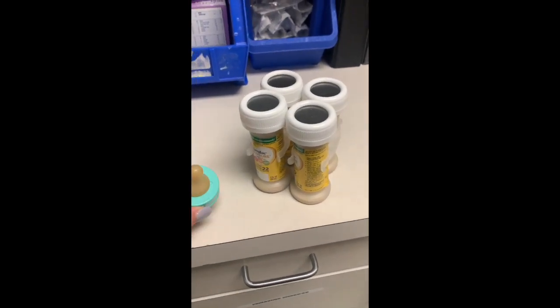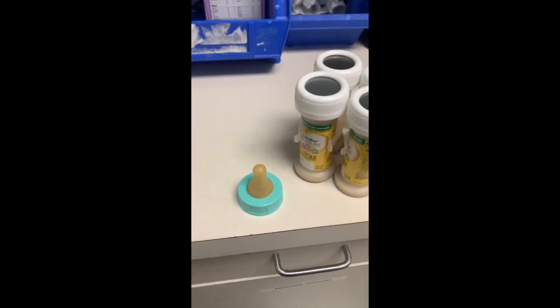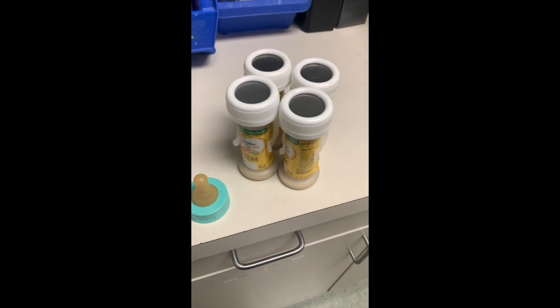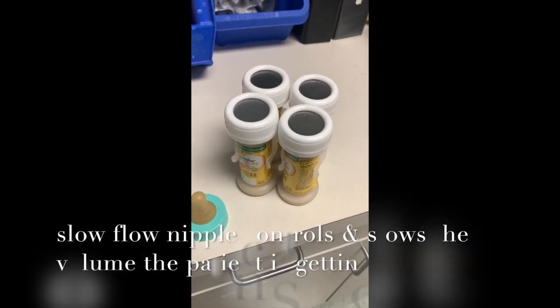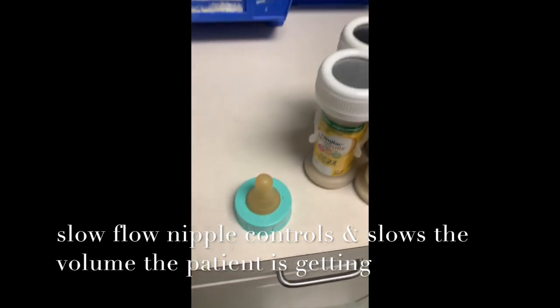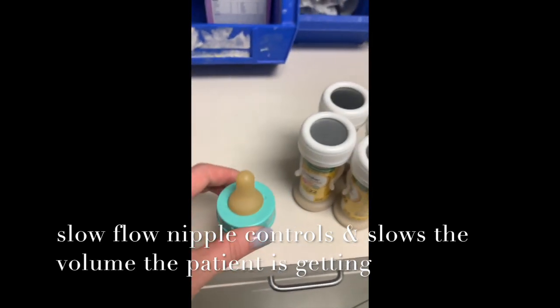This nipple helps with our kids who have dysphagia, different swallowing issues, who may be having feeding troubles, whether they just get exhausted feeding and are having to work too hard, and they need this nipple with the smaller opening to help slow them down.